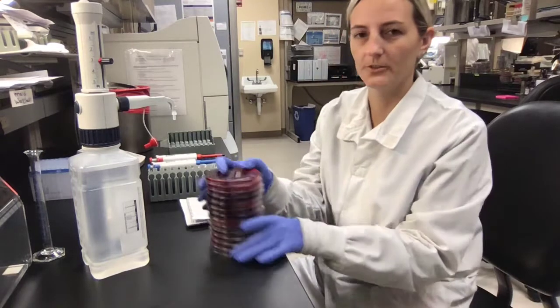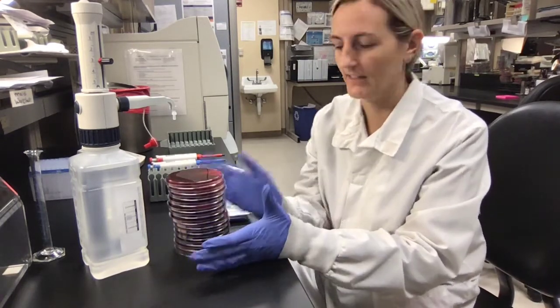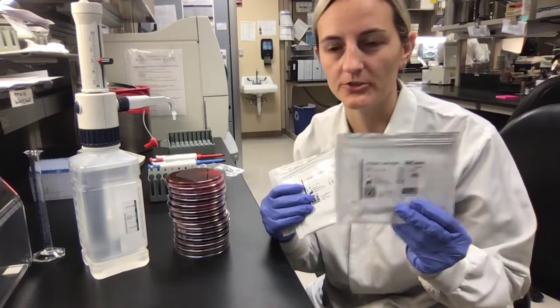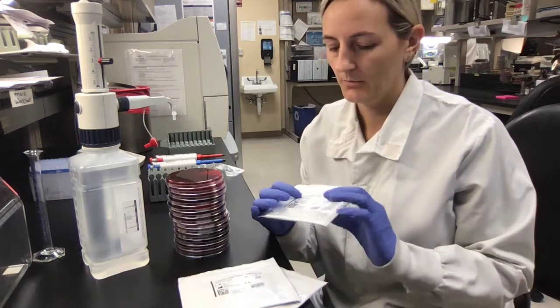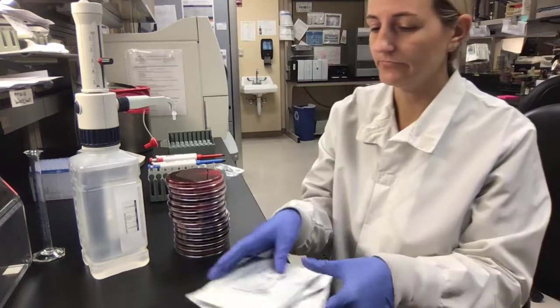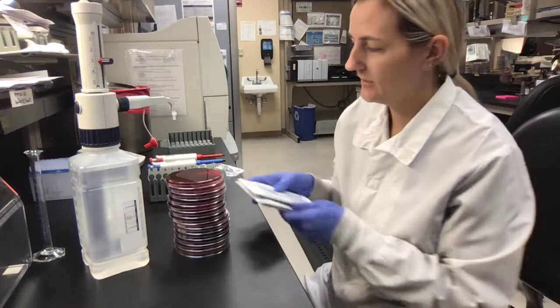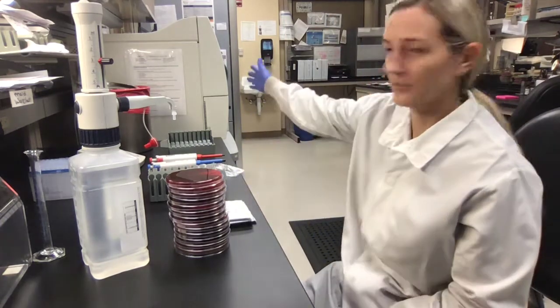It is now day two and all of our organisms have grown, so now we need to put them on the Vitek. We have three different types of cards: an ST02 card which is for Strep, a GN80 which is for our gram negatives, and a GP67 which is for our Staph. Each one of our organisms gets at least one of these cards so we can verify that our sensitivities are working. This here is our Vitek.